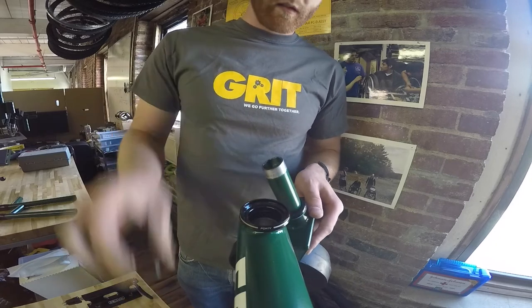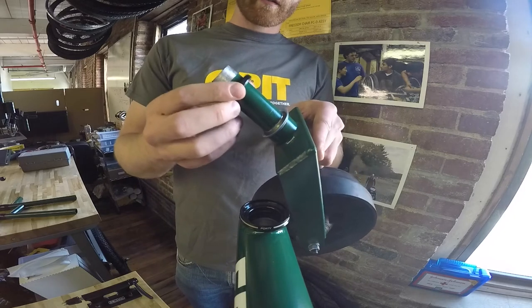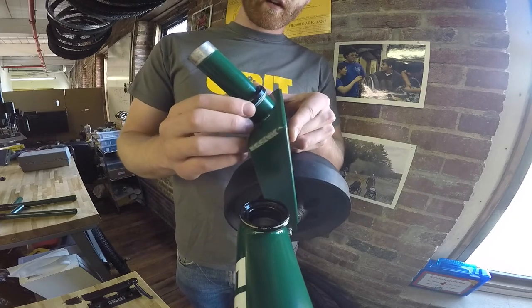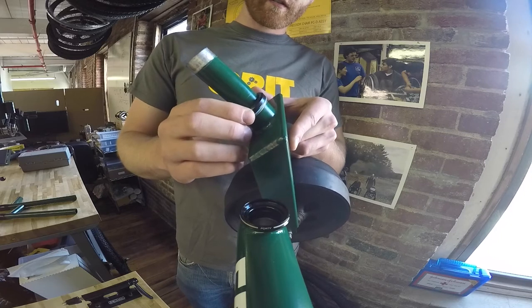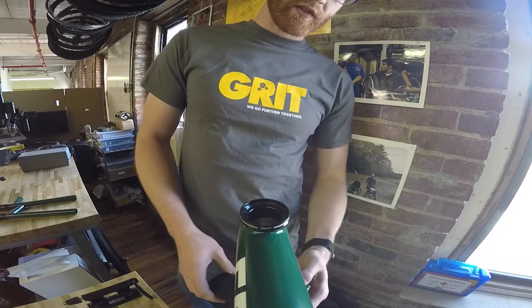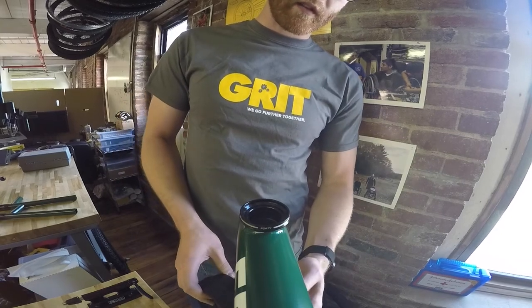One bearing and the second bearing can stay on the bottom. So how the assembly goes is: you'll place the first bearing on the crown race. The chamfer goes up into the bearing seat, and you install it into the headset of the Freedom Chair.